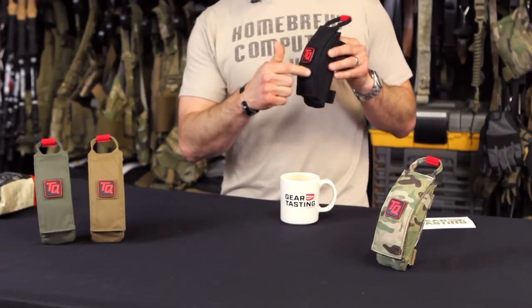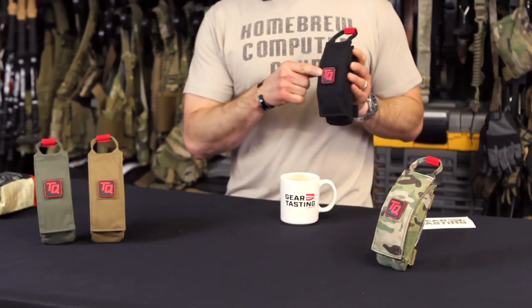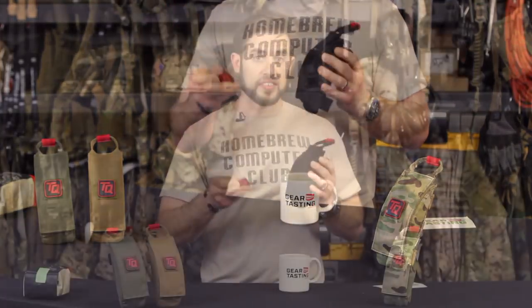If you're not familiar with our Tourniquik pouch, we've made one change on them. We did have an embroidered TQ logo on the front of each of the removable panels, but now we've changed that to have a little loop field and a removable PVC patch that is included with each Tourniquik pouch. We did that for versatility and it allows you to remove the branding if you need to use it for something other than a tourniquet. It is the first — and it's patent pending — device on the market to quickly release and deploy a tourniquet at the same time.